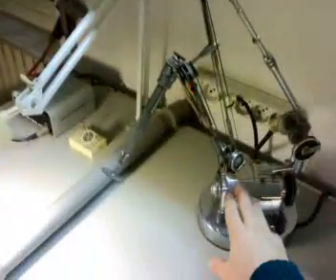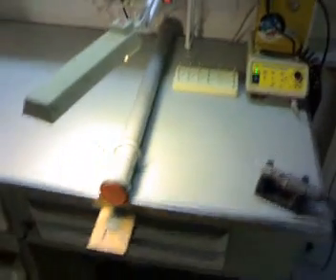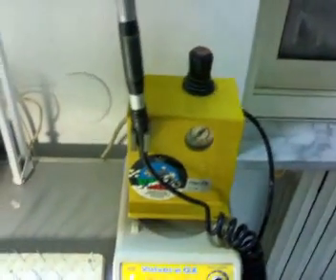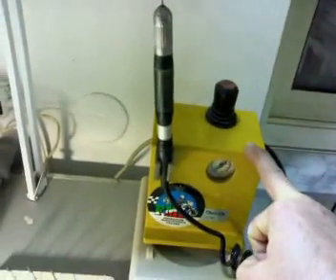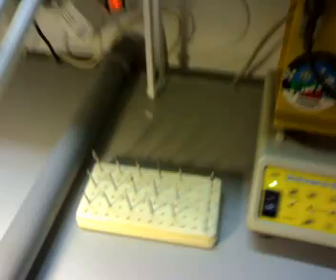Once the investment is removed, you have to finish the metal. I come back to the seat here and use this handpiece — it has a lot of torque — to cut off the casting from the sprue. Once it's cut, we go to fine finishing with a completely different handpiece and engine. I also have a bench-top turbine for certain things, and as you can see, I use these Comet stainless steel burs. I also have a suction piece here.